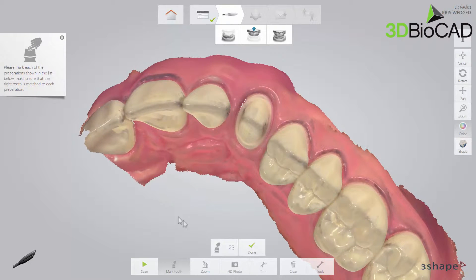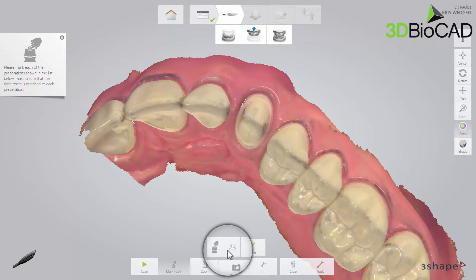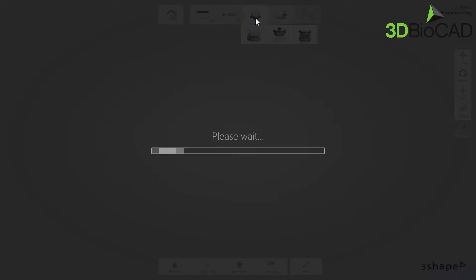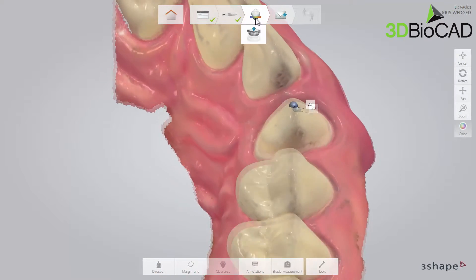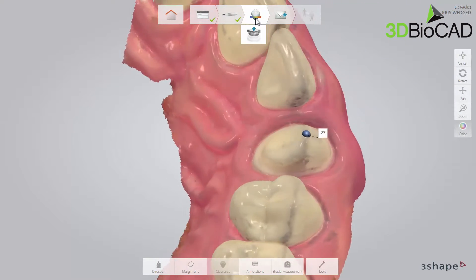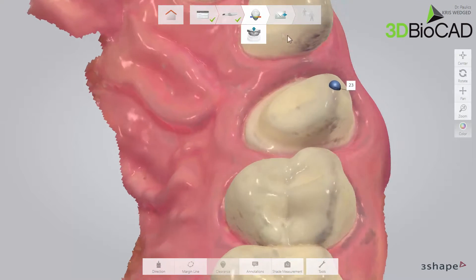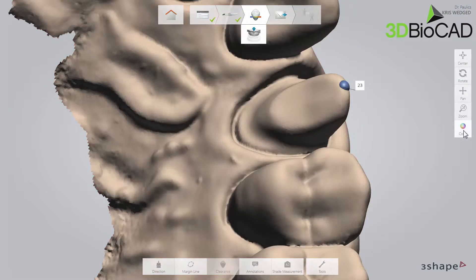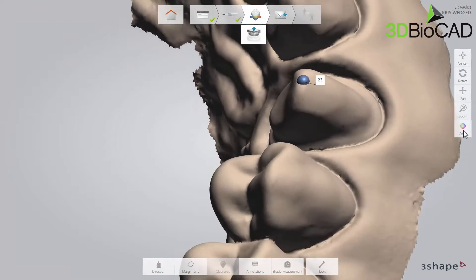When the scan is ready, mark the tooth chosen in the order form and move to the analyze page. Once on the analyze page, you can examine the scan and set the margin line, serving as guidance for the technician. Turning off the colors will in many cases make the 3D detail stand out more clearly.